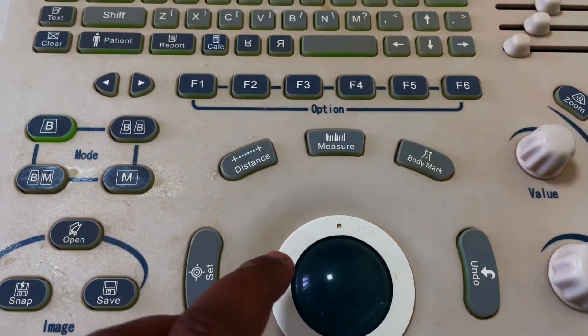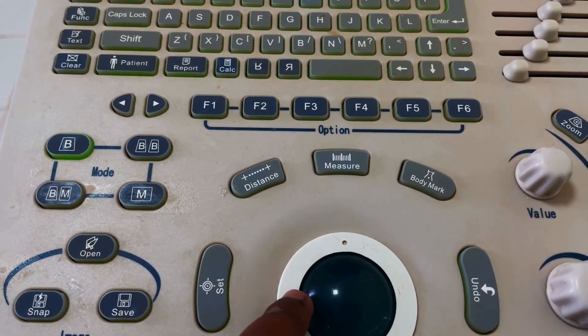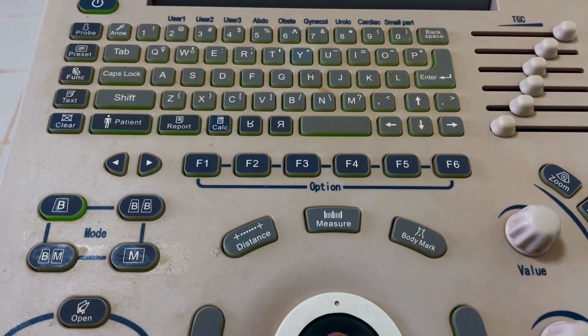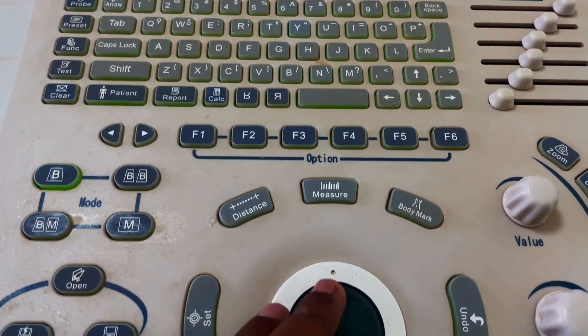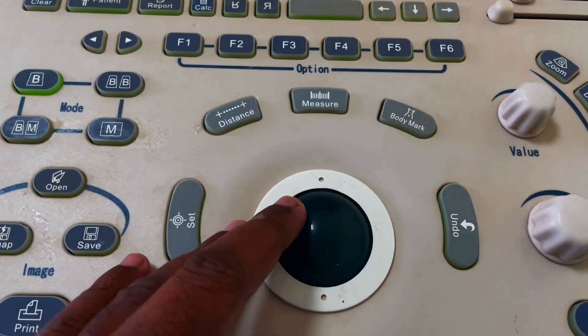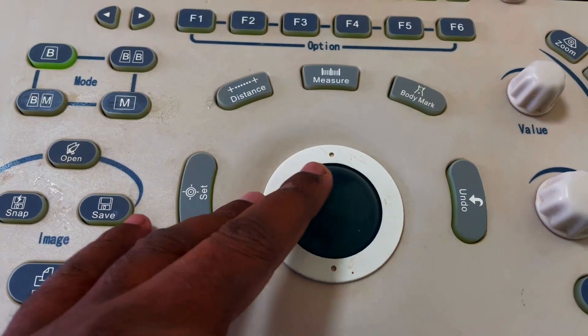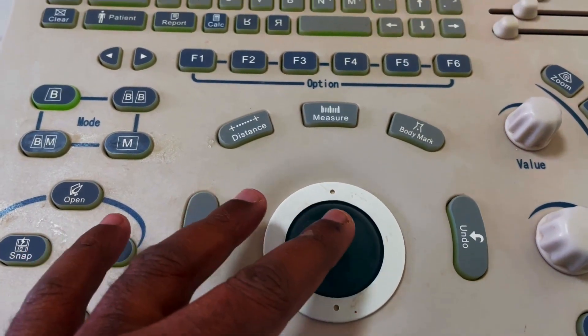This one is our mouse button or wheel button. This will help you to customize the mouse position or arrow position.